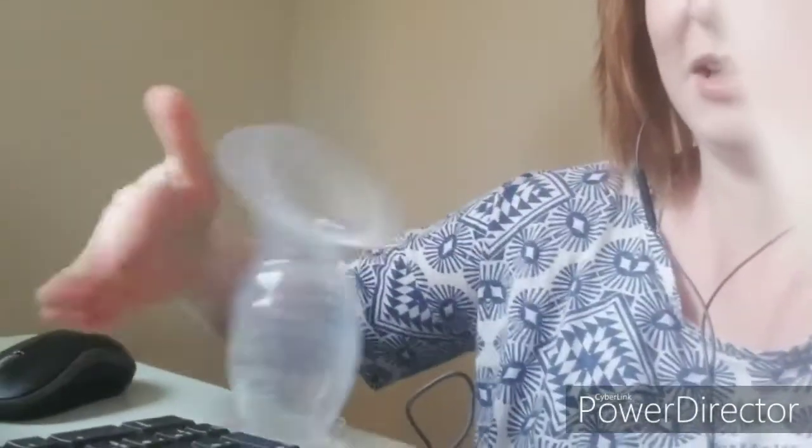That's not getting knocked off the table. All right, let's not be crazy. But then it's got the little tabs — you can pull it right up. So you squeeze and collect the breast milk, stick it on your nightstand or wherever you need to for the moment to get yourself situated. You can then stick it right on the other breast if you need to. You can use it out in public. I love this, I think it's so cool, I'm excited to try it out.